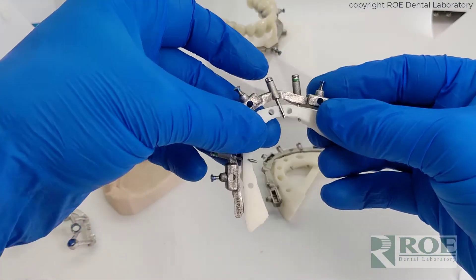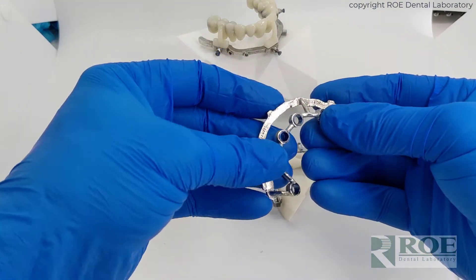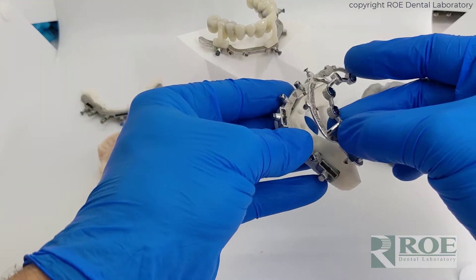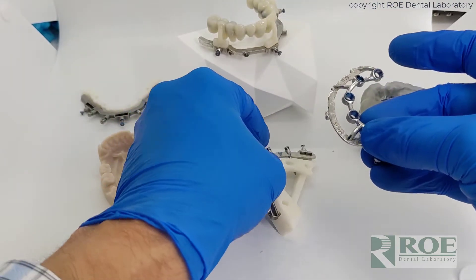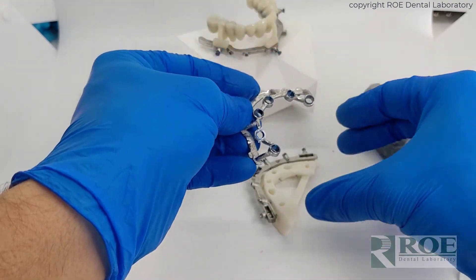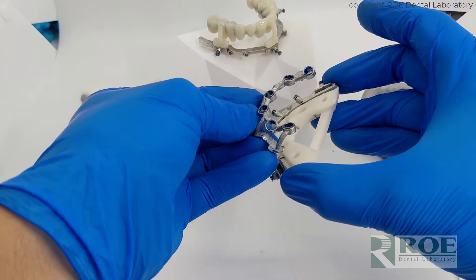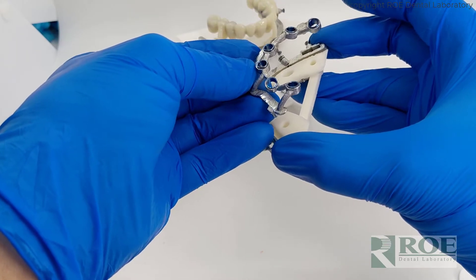Floating guide technology has the pins. And then of course, the other reason to use metal is because the osteotomy guide is rigid. It is very, very strong. It does not flex during surgery. And also you have full visualization to watch your drills and your implants go in and also the ability to irrigate.